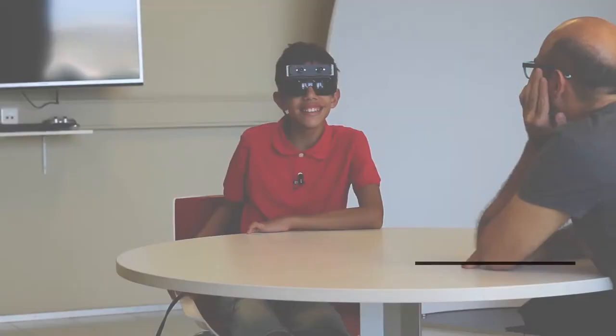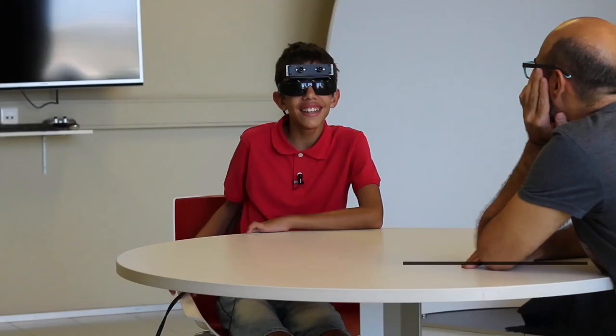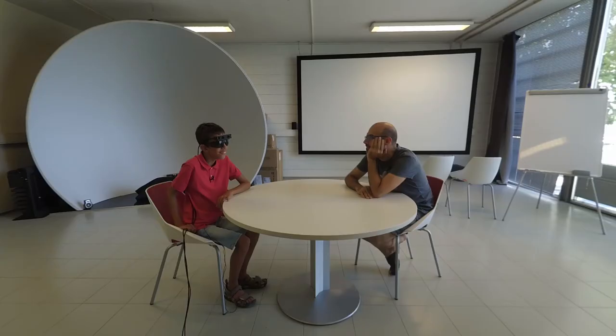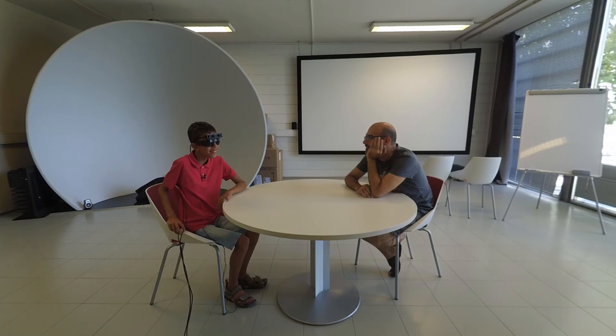It's cool because this way you don't have to, for example, if you go to a restaurant and you don't have the need to ask, where is my bottle? So you make this gesture and say, okay, it's here. It's easy to assimilate. It's easy. There's no need to pay full attention. You don't have to be concentrated on it. Exactly.